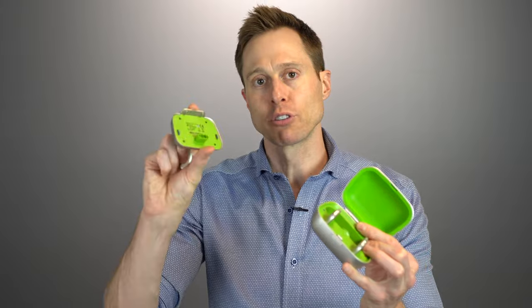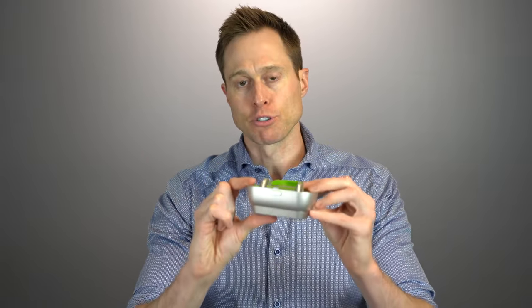When it comes to the actual charger itself, it does not have an internal power bank, but you can purchase a power pack that plugs onto the bottom of this charger so it can store several extra charges for you to take on the go. Otherwise, you could always purchase an aftermarket battery pack on Amazon and use that instead.